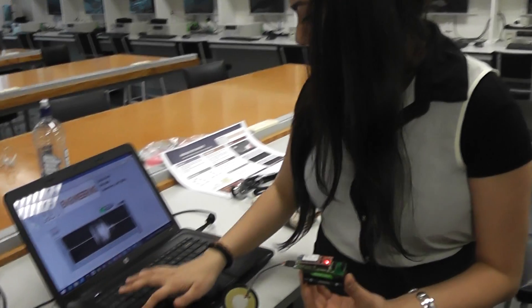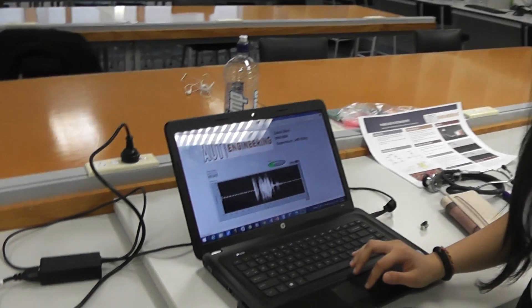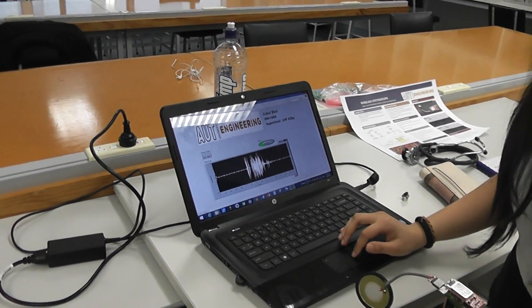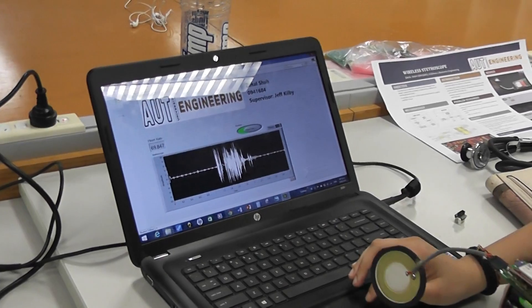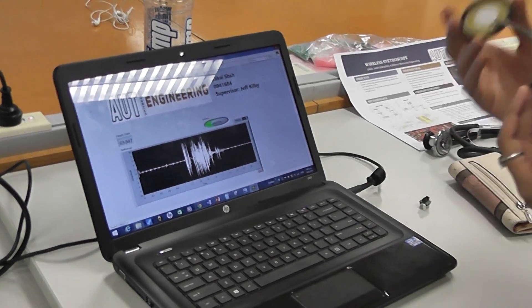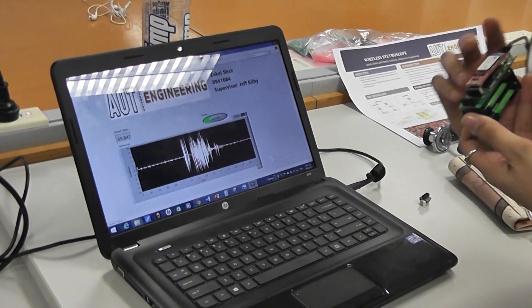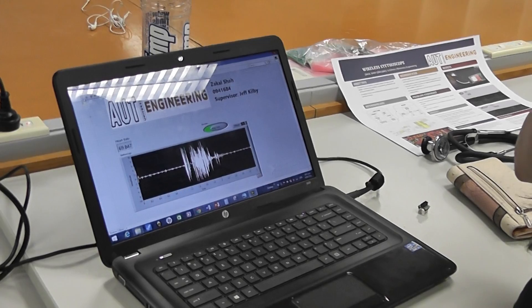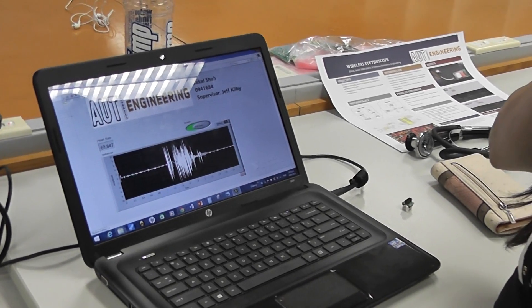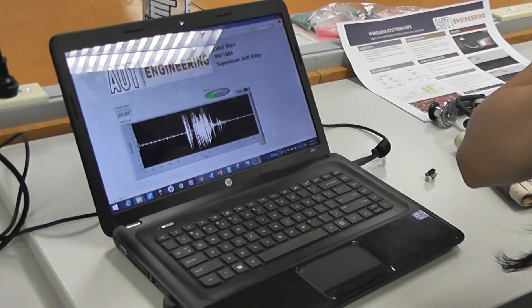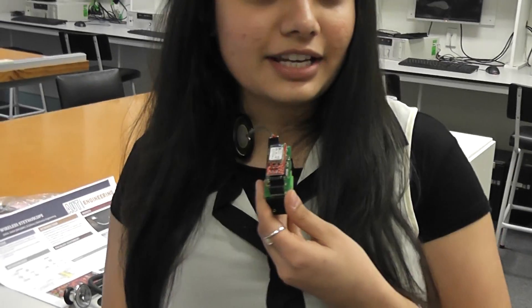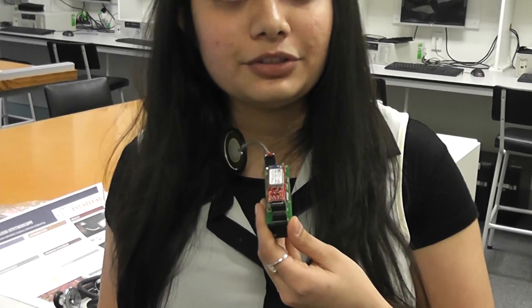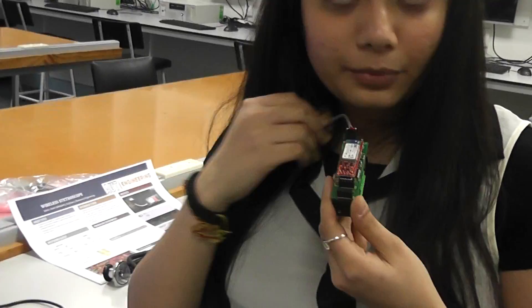And this is my software and the way it works. This is in LabVIEW. So if I place this on my skin... you put it on your neck because there's a pulse there. Yeah, there's a pulse there. So as I mentioned in my presentation, I went to UT doctors and they told me where the pulses are. One of the places is your neck.